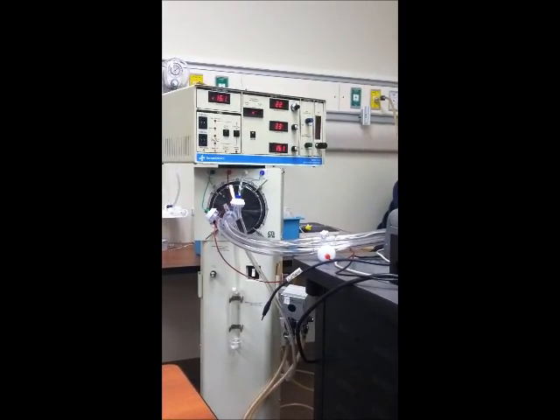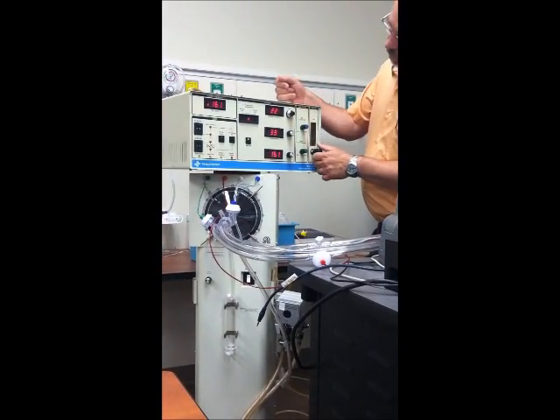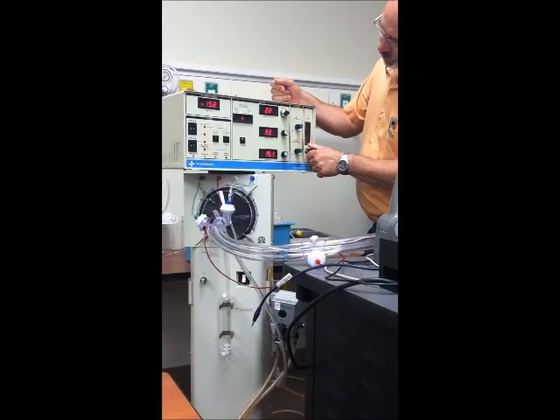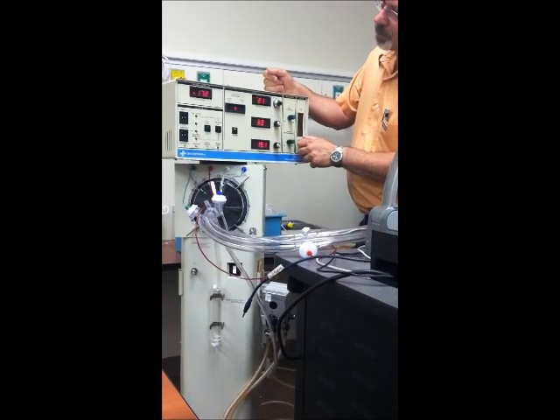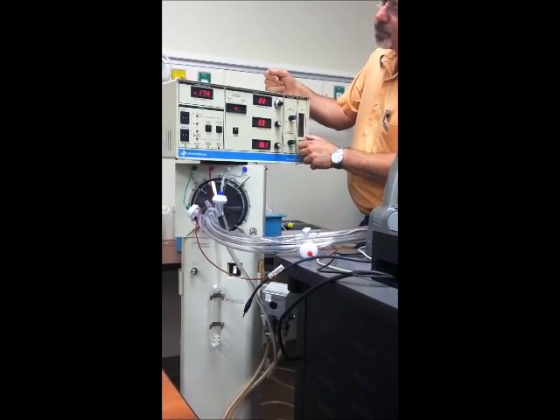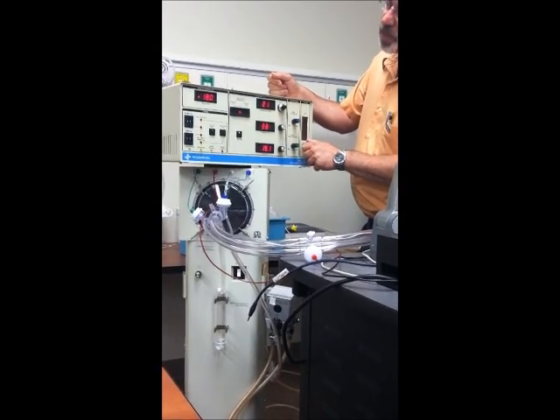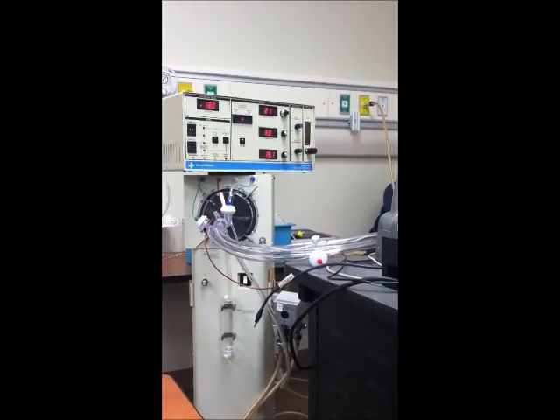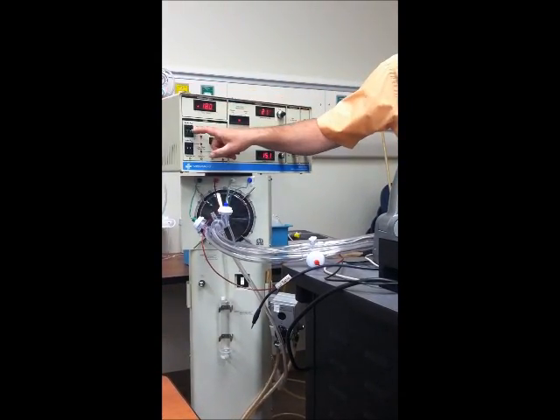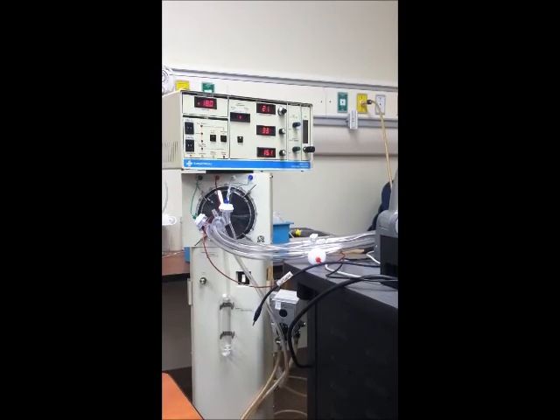Now we're going to go to 18. Well, I'm already maxed out, so I know I'm going to have to use my bias flow. Now with these, like in the baby log, if you start turning the knob one way and it's the wrong way, I probably wouldn't be as strict on this one. At 18, I probably want to bring this alarm back up a little bit more. Centered piston. I don't think our piston's moving at all.